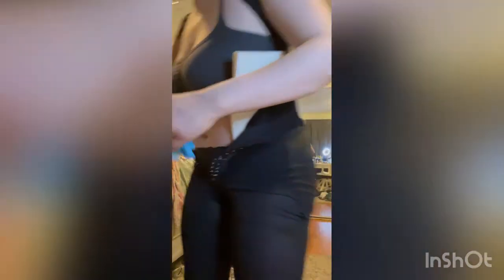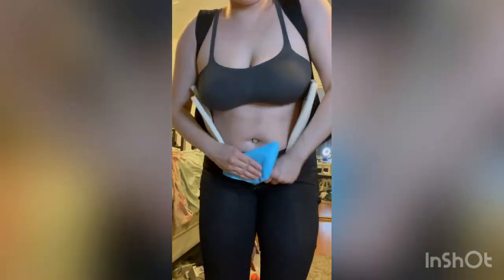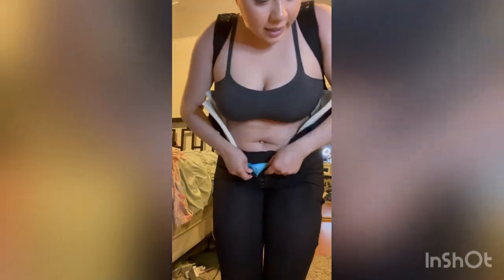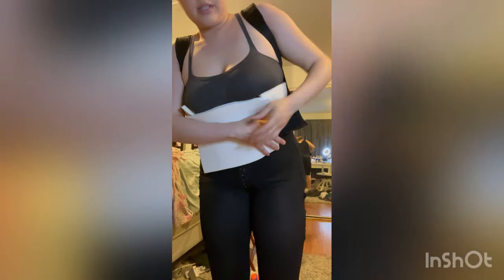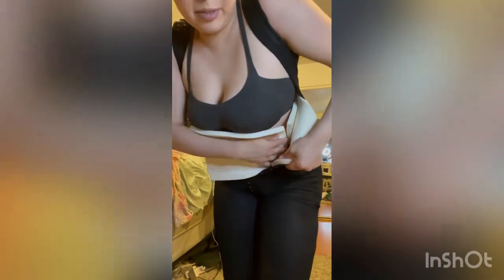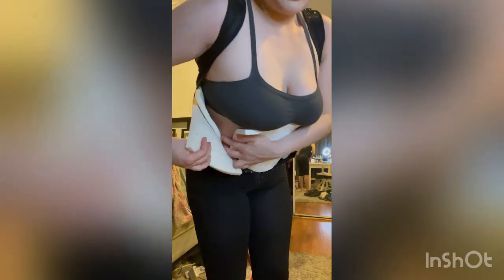I should cut the corner off this because it kind of slips down. Like I said — adjusting however you need to. You're going to be wearing this for a while. I stopped bleeding after about four or five days. The first couple hooks I did on the tightest row, now I'm going to start moving over to the second row. Then I'm going to put my last foam in — I'm hesitating to go inside because I don't want a gap between these, because then my skin will have a crease and it will hurt, and my skin will swell in between.